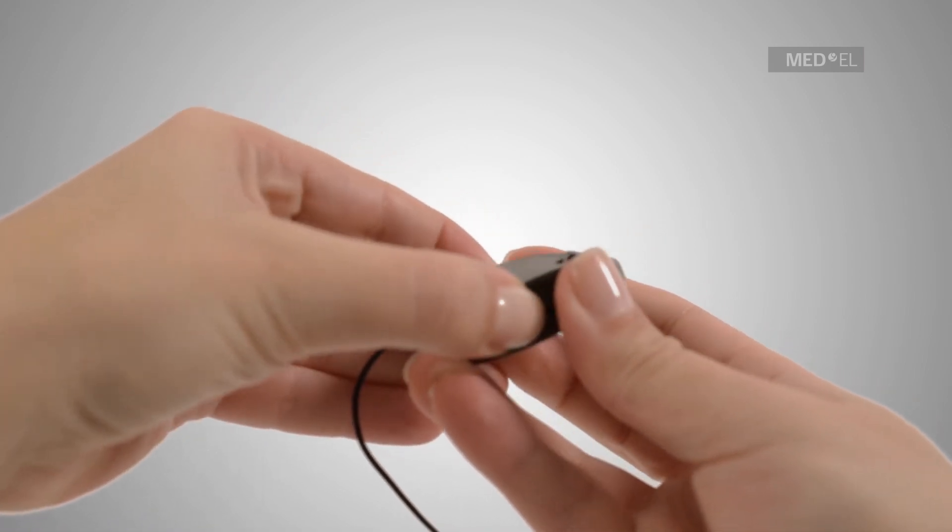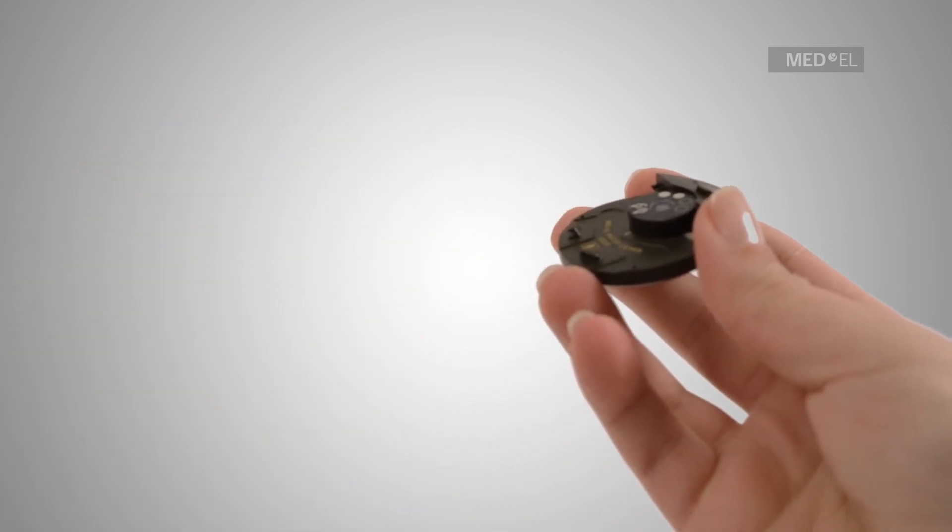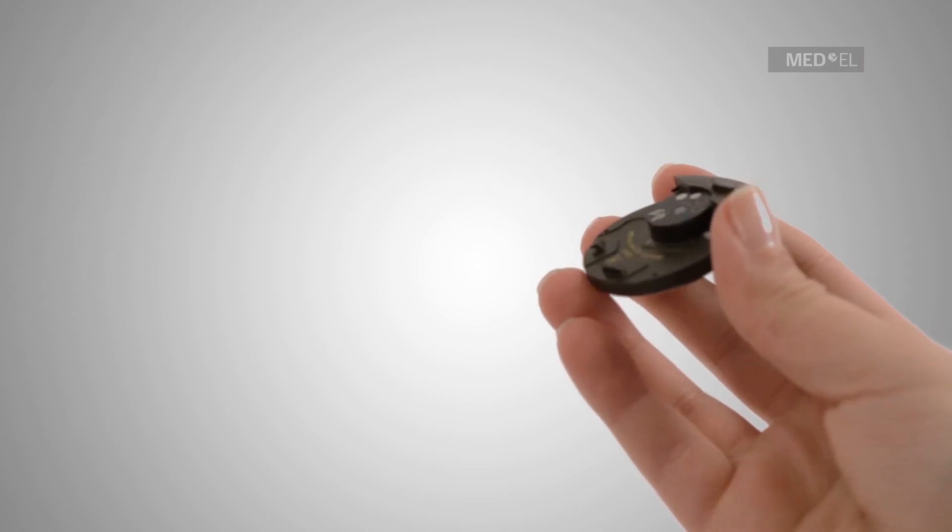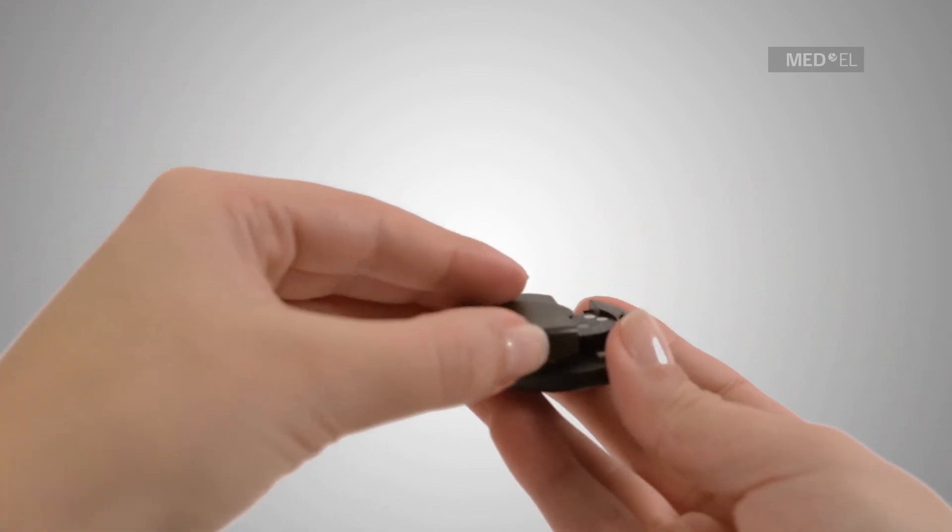To reattach the battery pack, once the RONDO connection cable has been removed, use the gently landing airplane method.